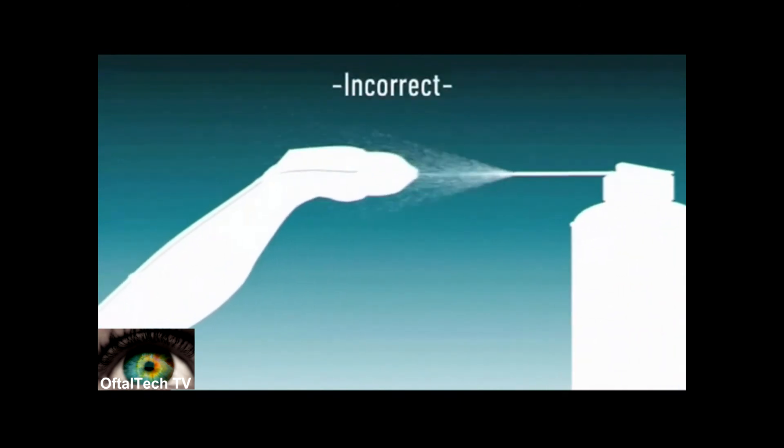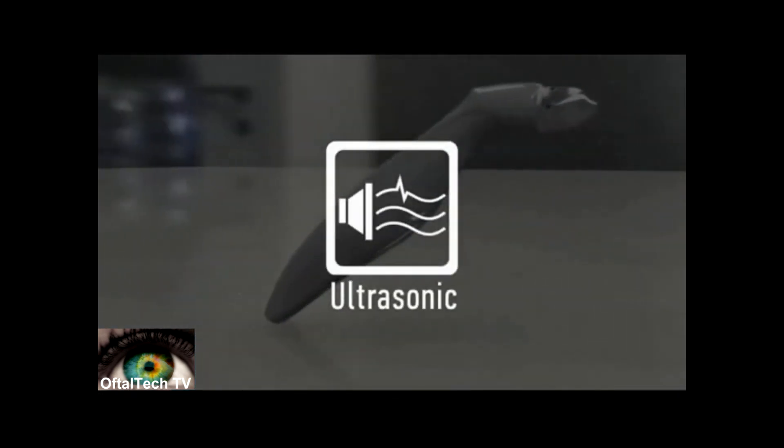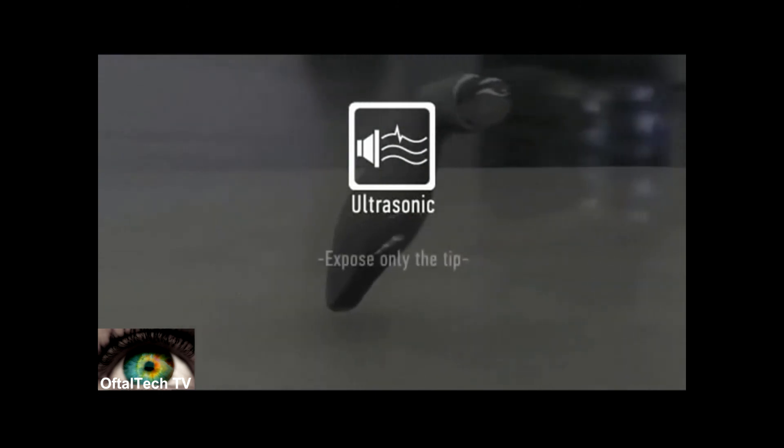An ultrasonic cleaner can also be used to clean the tip. Expose only the tip into the ultrasonic bath. It is important to dry the tip immediately after cleaning.